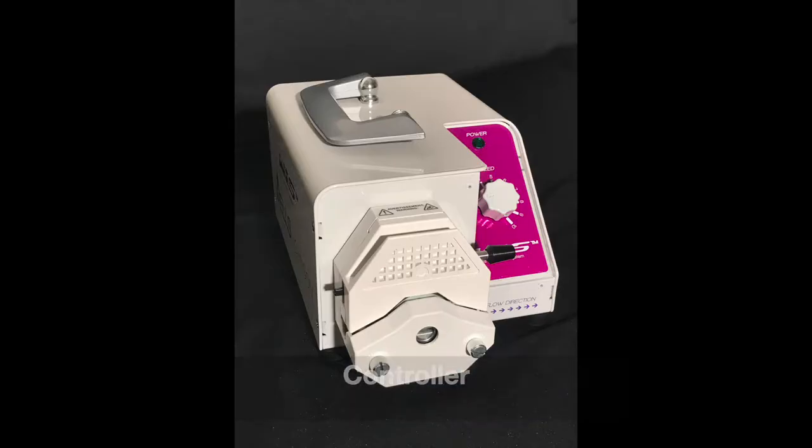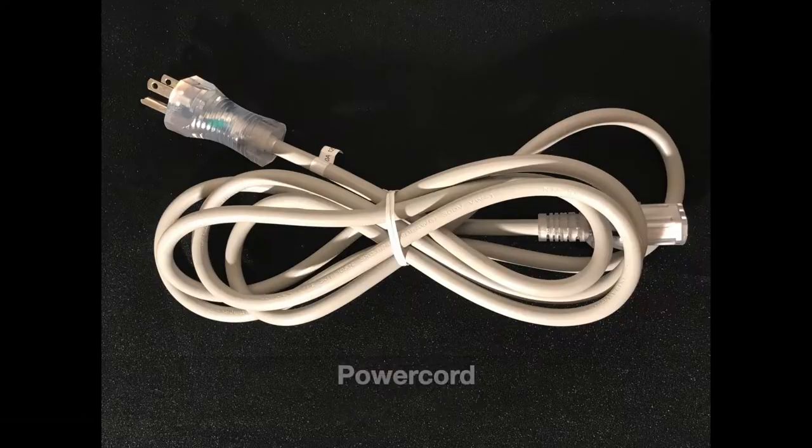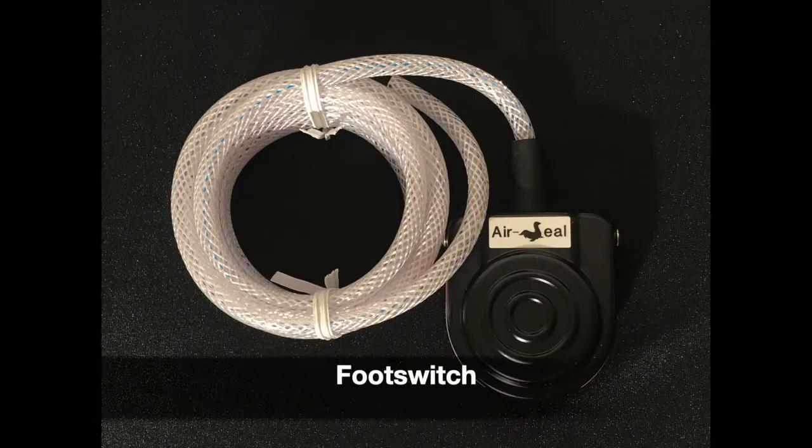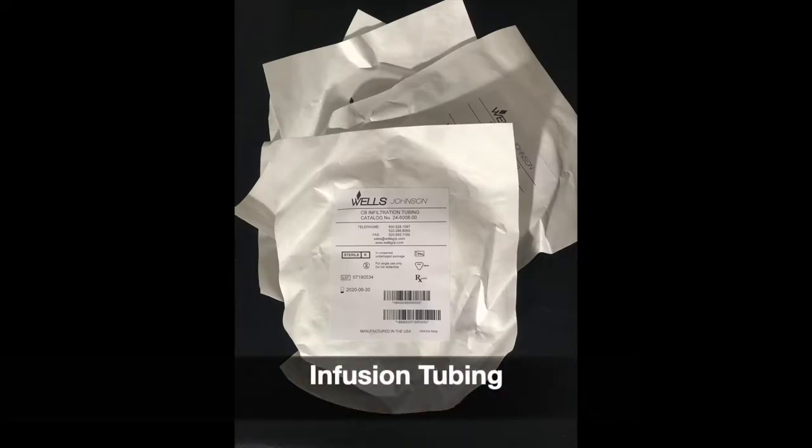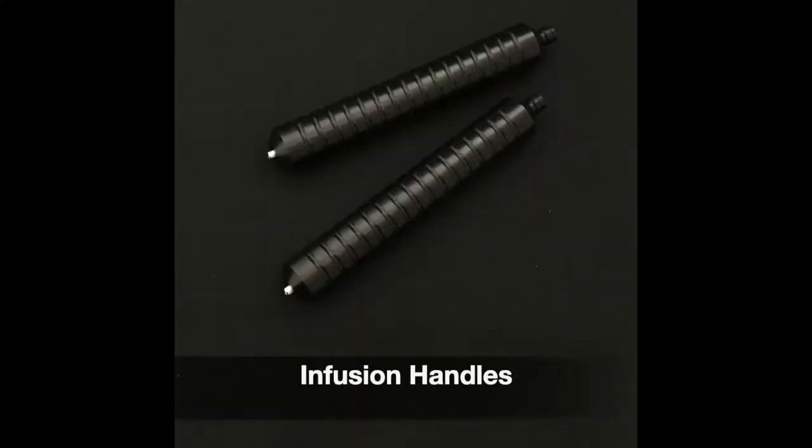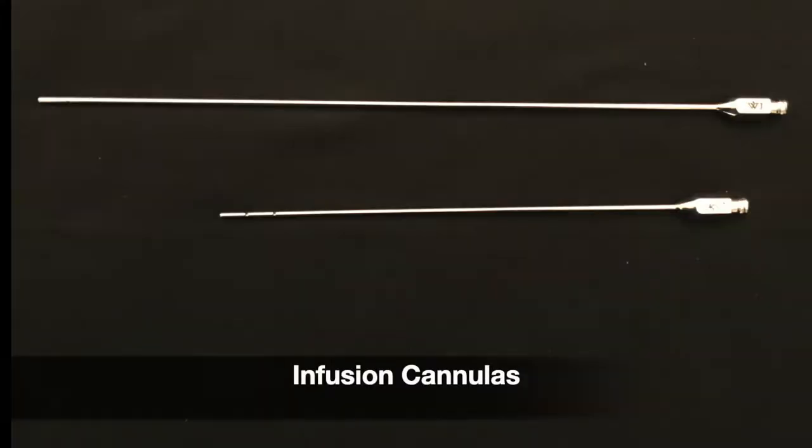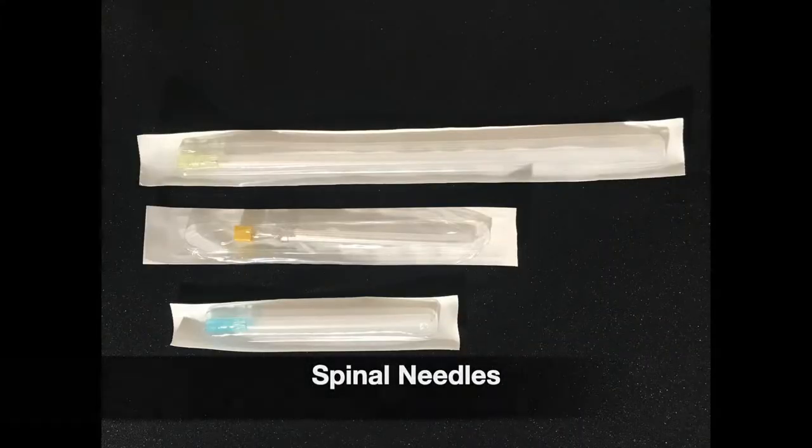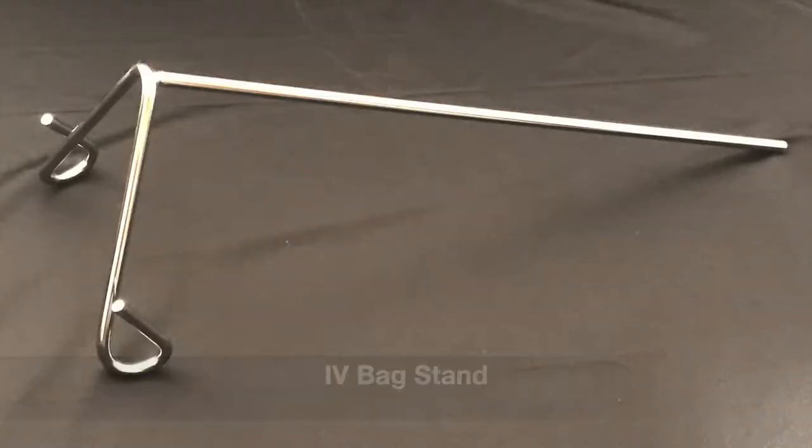Pump controller, pump head, power cord, pneumatic footswitch, infusion tubing, infusion handles, infusion cannulas, spinal needles, IV stand, user's manual.